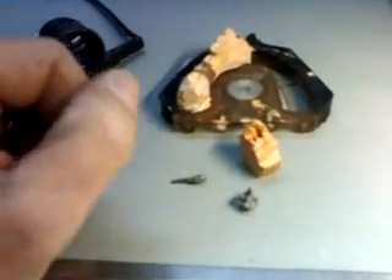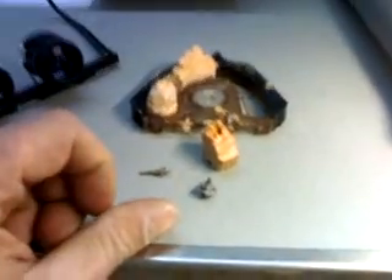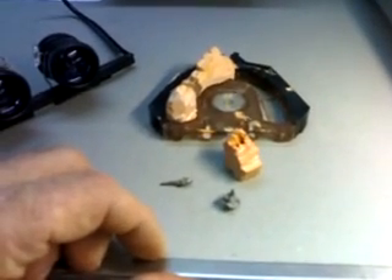Once it is smooth, it will be cleaned ultrasonically, and then my wife will be delivering it to the dental office and doing the paperwork. It is not just a matter of technical aspect — there is also a matter of certification behind each medical device. In Europe these are called individual medical devices since they fit individual patients, and there are certification requirements that must be met and documented on paperwork.